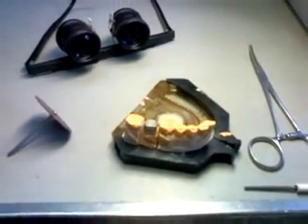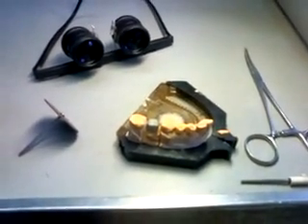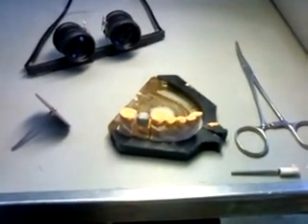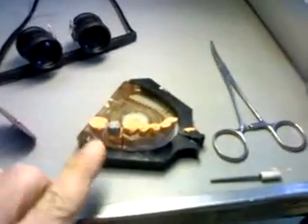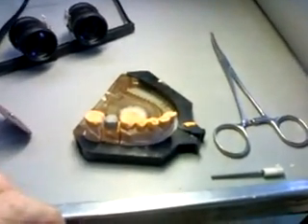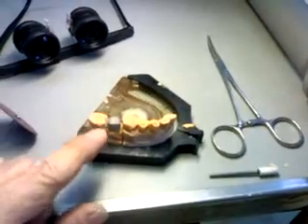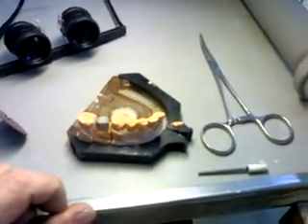After that it needs to be completely clean and ready to go to the next procedure. Now we will work on this unit. This case is not articulated — it will be all hand-articulated — and that is the best way to see spaces.